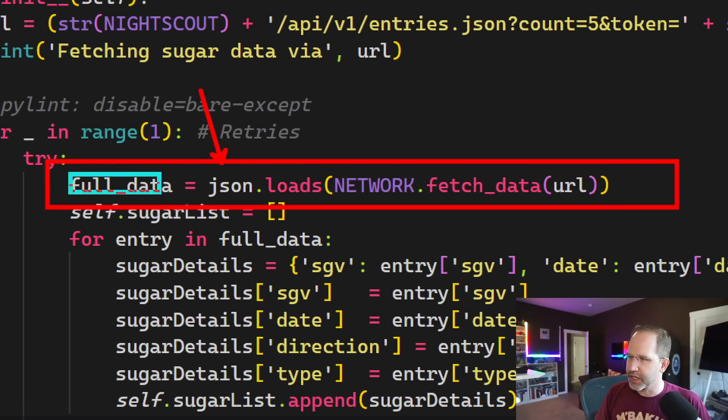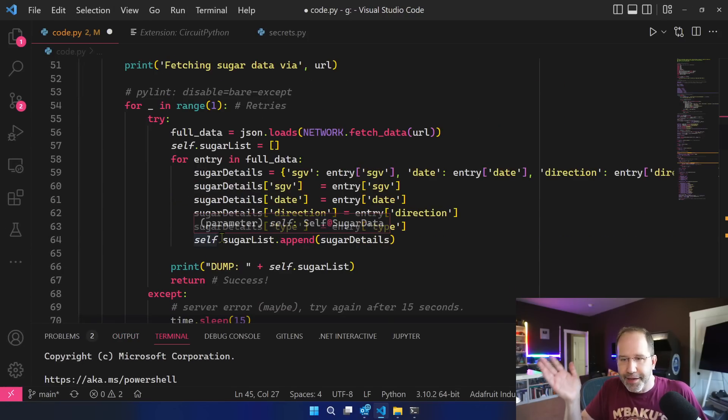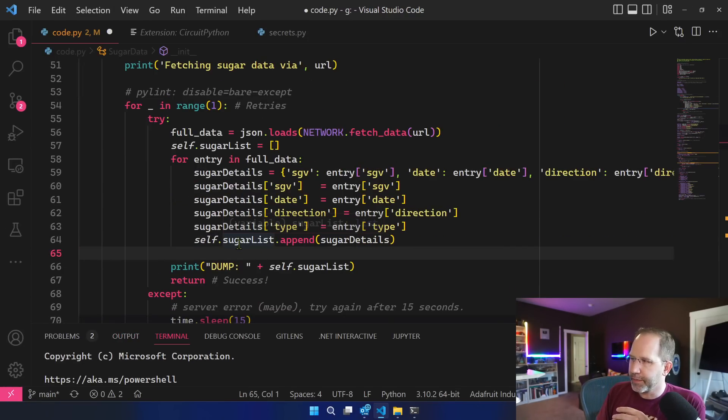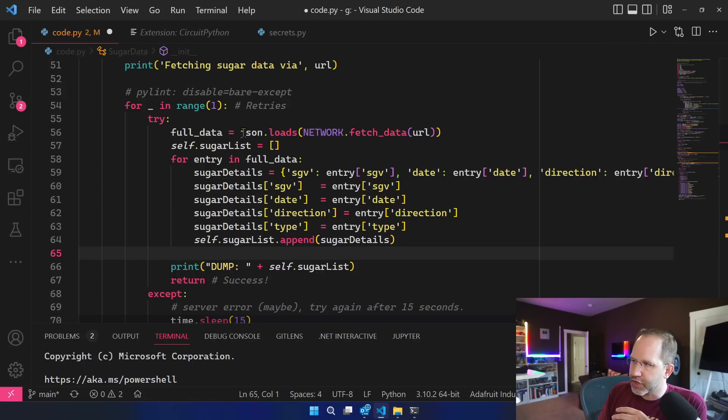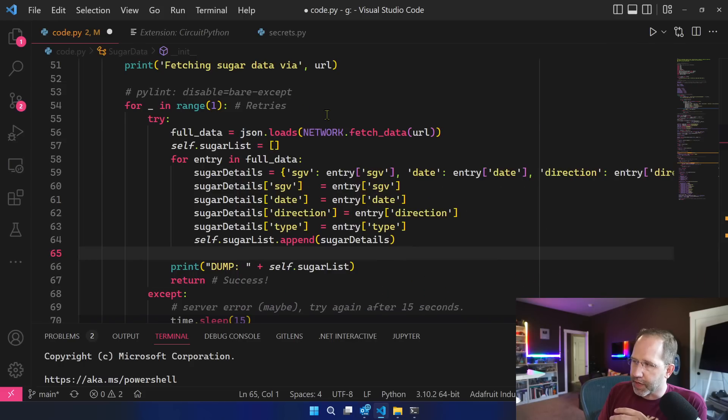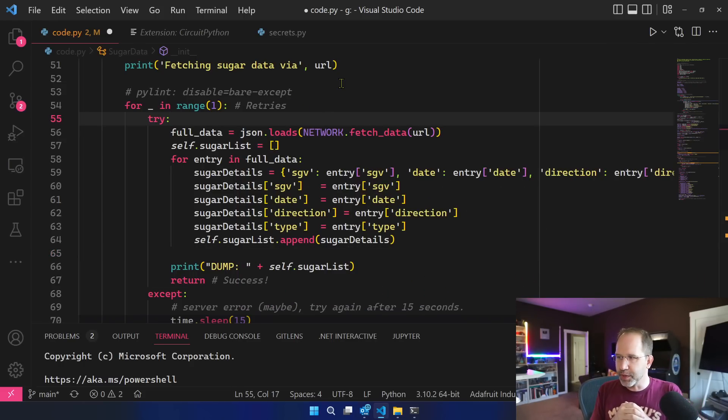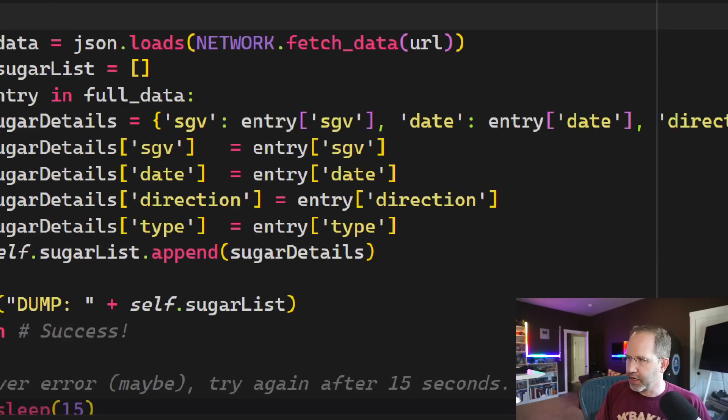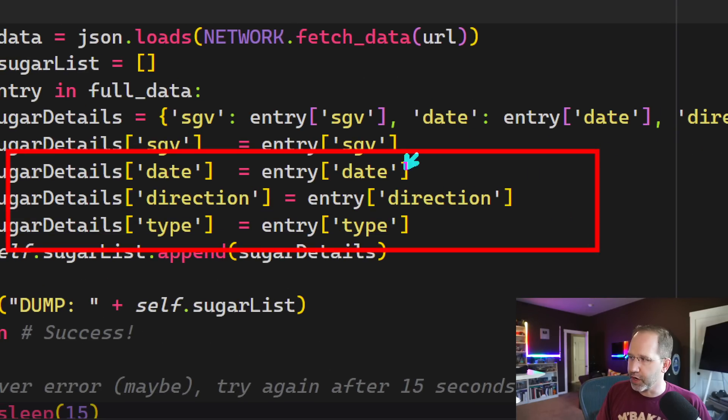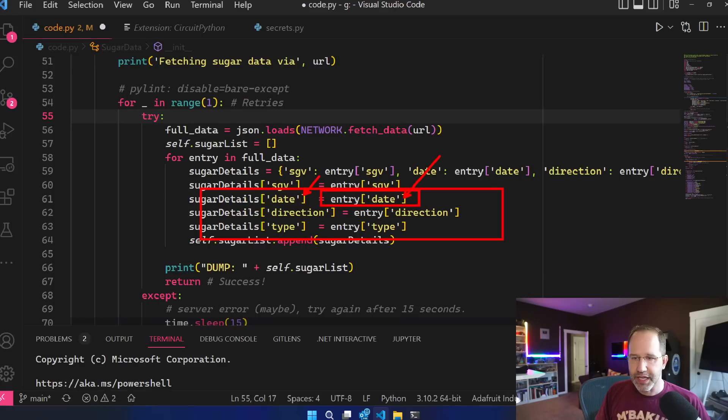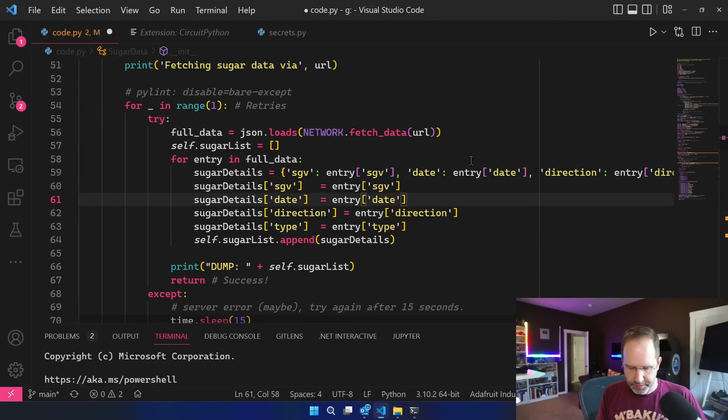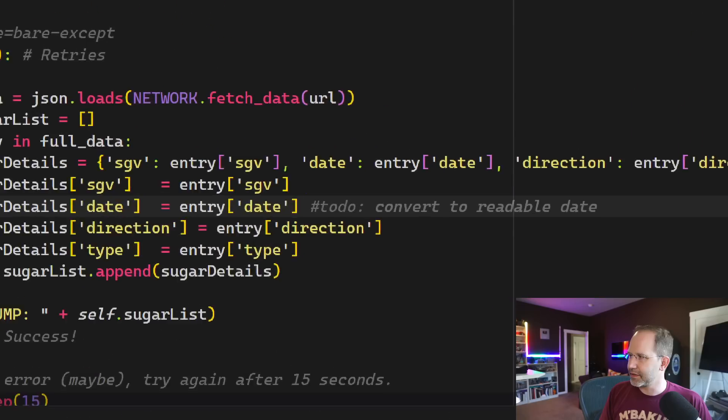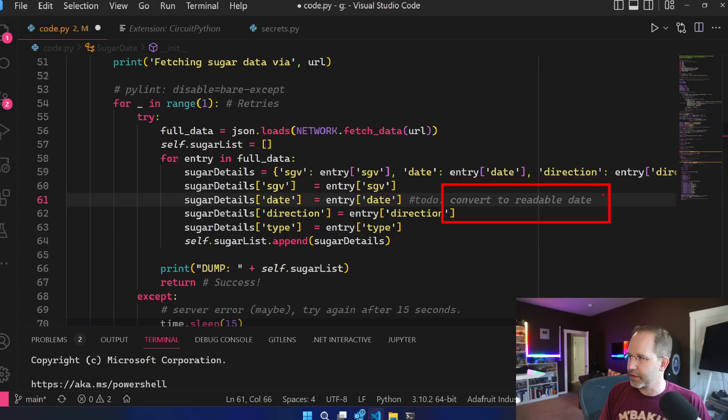Then we say json.loads: hey JSON go and load this out here and all that data is going to be sitting in this full data. Now here's where I don't know if I'm doing the right thing but I could have dug out each module easily. I could have dug out the JSON from the shape of that JSON but I kind of built a dictionary and let it do some left hand right hand work. I'm not doing it very well because I'm just going and taking whatever data type this is and putting it in the same place. But at some point because this isn't really a date, it's actually an epoch.